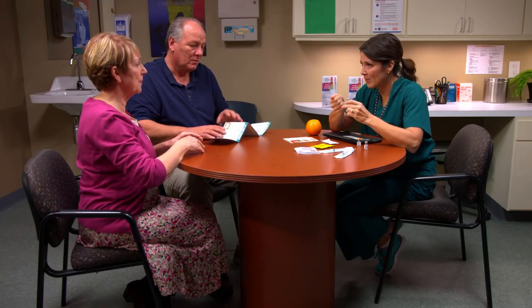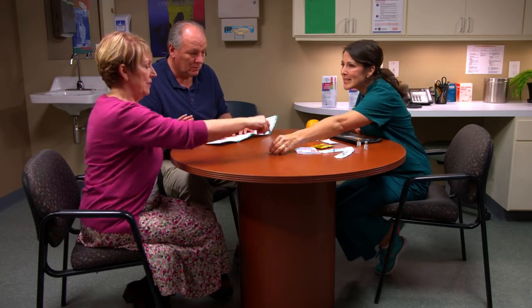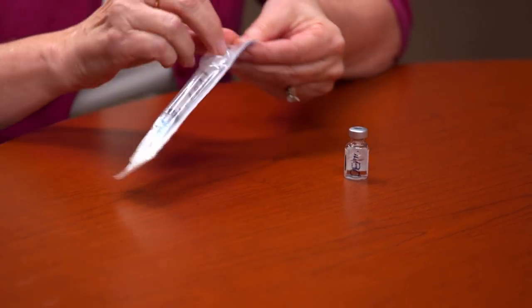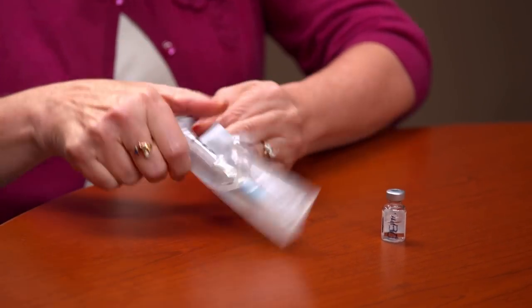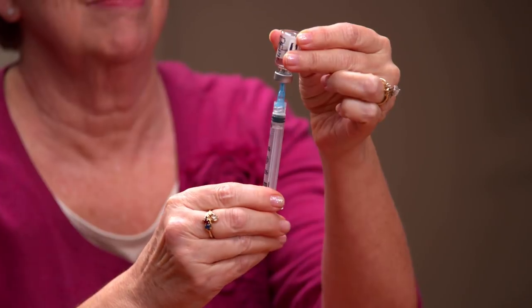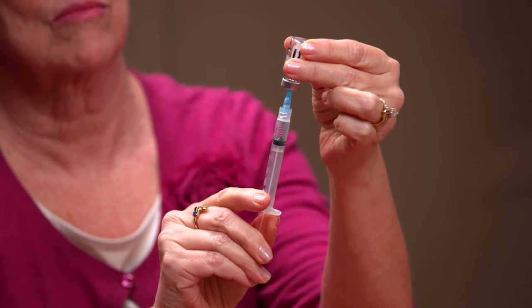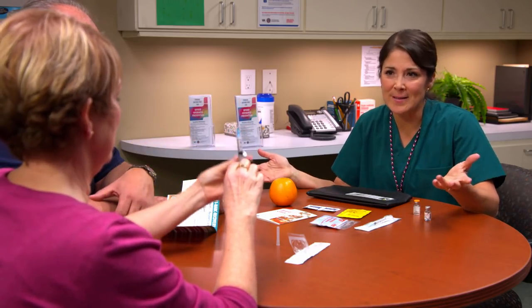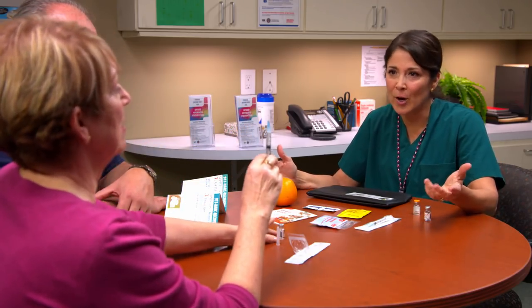First of all, you're going to uncap one of the vials. This one's already uncapped, so just pretend. I'm going to give you that needle — open the package and take it out. Good. Now uncap the needle. Now hold the vial upside down and push the needle through the rubber plug into the liquid. You got it. Now draw down one milliliter. Alright, withdraw the needle, and then you know the rest — tap it and clear any air bubbles. Perfect.